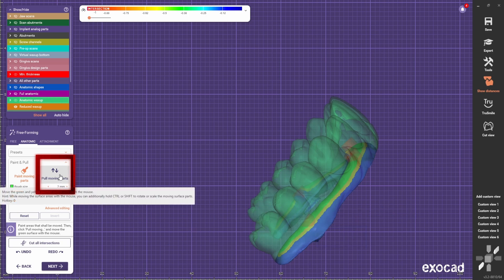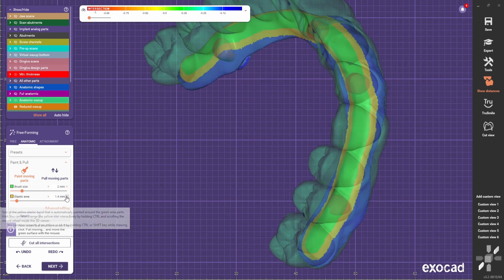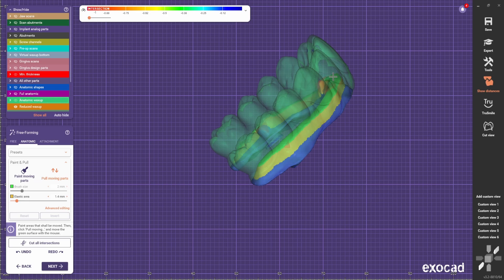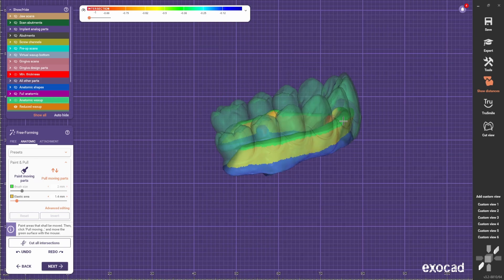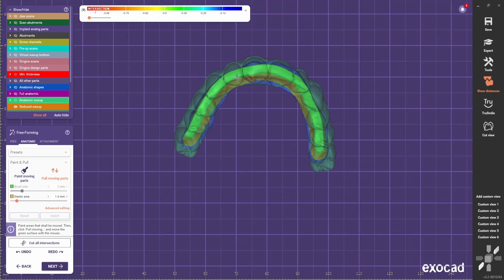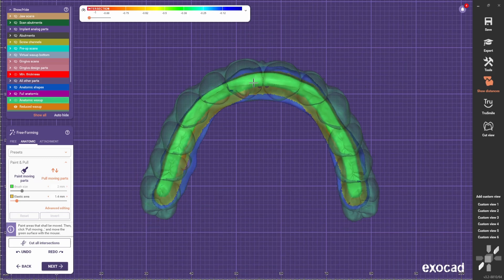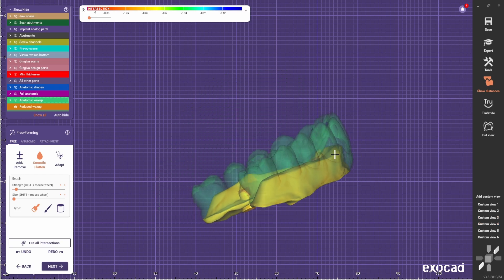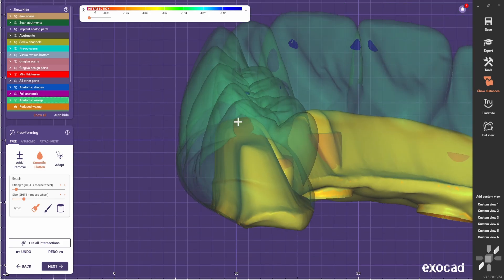Now we're going to use the pull tool. You can increase a bit the yellow part — every time I go up it grows a bit around the green part. So we're going to create the body of the bar. At this stage we can play around a bit to see where the best position is. At the same time, we need to see from above to see if we can see the margin all around and avoid any undercuts. Using the full contour we can shape it better with the free-forming tools to make sure we have no undercuts and we have a smooth bar.